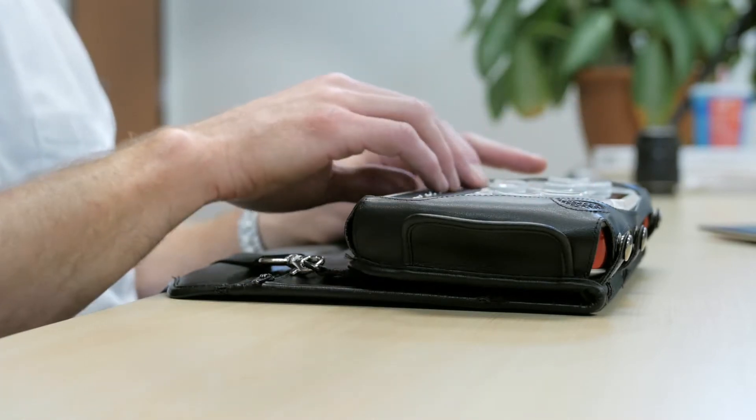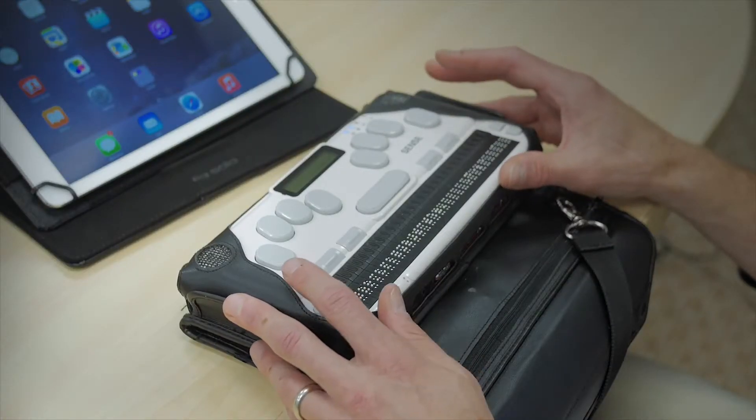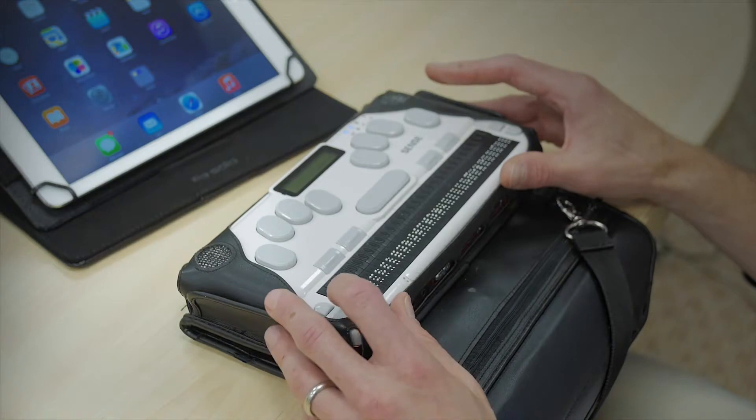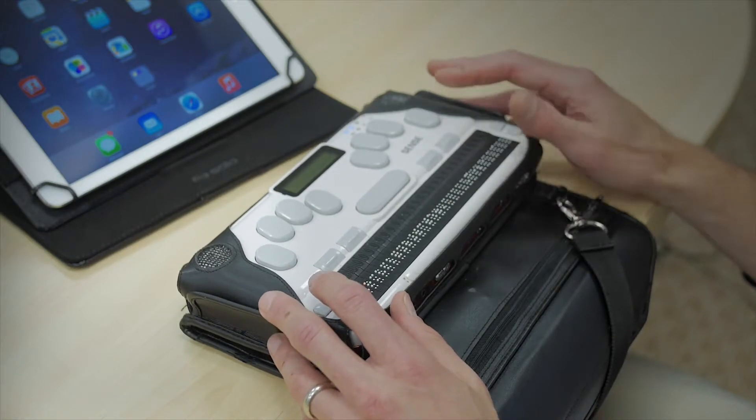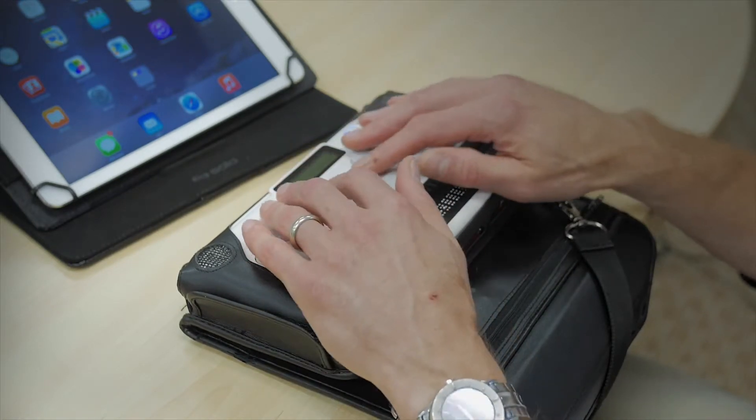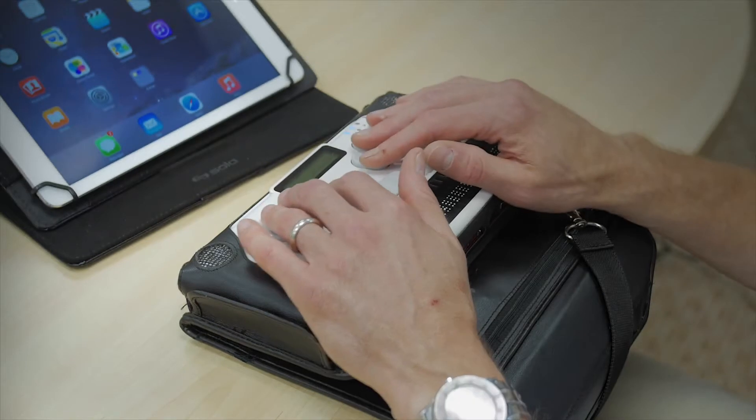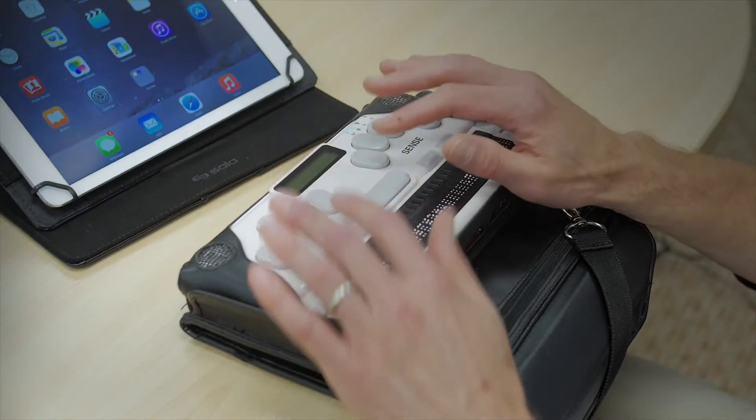Calculator C. It takes me to the calculator which is the first item in the utilities menu. I know that I want to go to terminal for screen reader and in this case I know that the shortcut key is S and I'm going to use it.